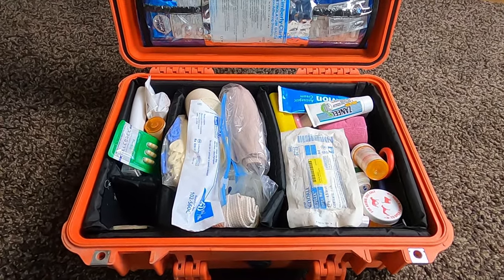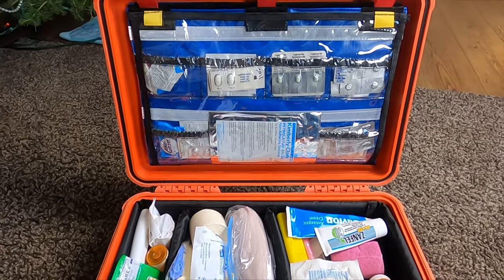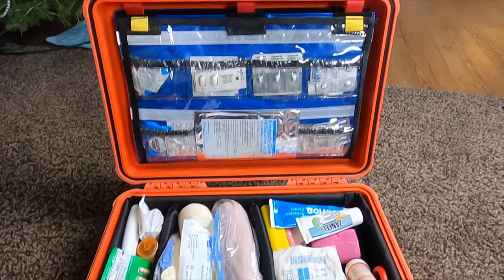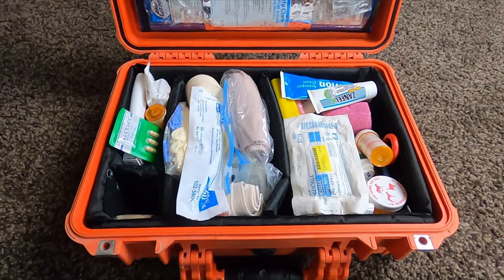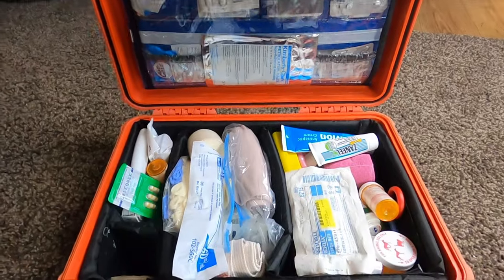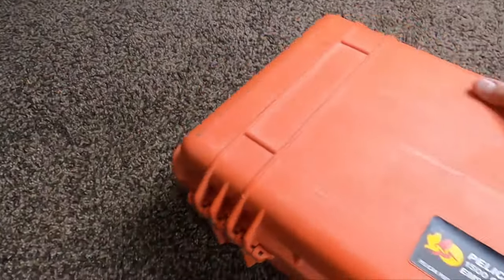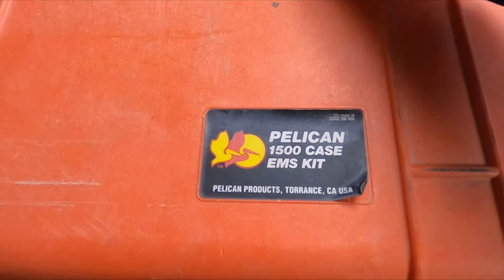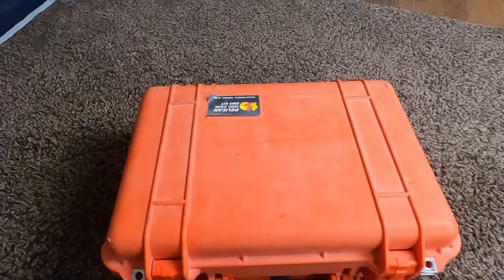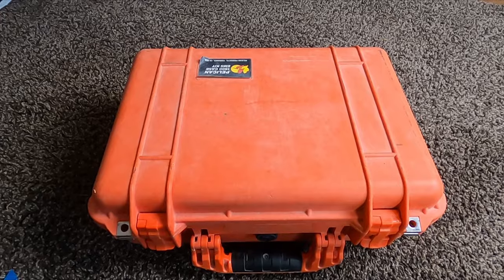Overall, I think we really love this kit. Anytime you pull this out and need to show a ranger at somewhere like the National Park Service - if you're doing a Grand Canyon, Gates of the Lodore, or even Canyonlands - the NPS can be pretty particular about their first aid kits, but if they see this, they're not going to bug you because this is actually what they use as well. So that is the Pelican 1500 EMS kit and I really, really do like this thing. It's also sturdy enough that I can actually step on it when I'm getting on the boat, so I never worry about stepping on it and injuring it in any way. Pelican makes bomber stuff.